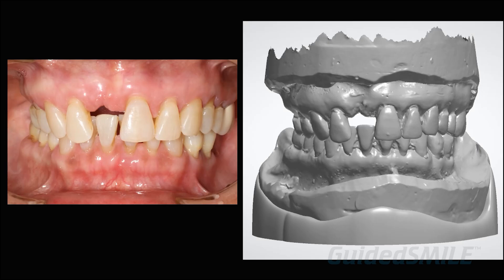The doctor sent in actual physical models as opposed to digital — we still get a lot of physical models and that's fine. You still get little bubbles and voids when you take traditional impressions unlike digital, but we do get the full anatomy almost every time with conventional impressions, because a tray going into the vestibule usually captures it better than a digital impression. The full vestibule is really important, especially if there's a lot of bone reduction, because we want to be able to make a pin guide and fixation base that meet that tissue so you can try them in and confirm the full depth.